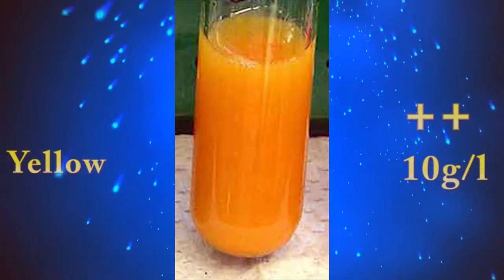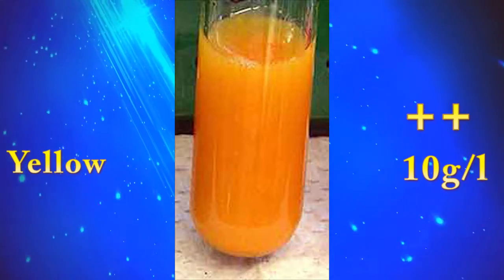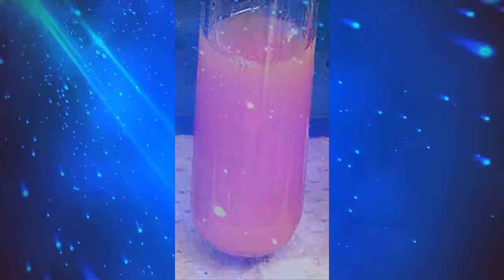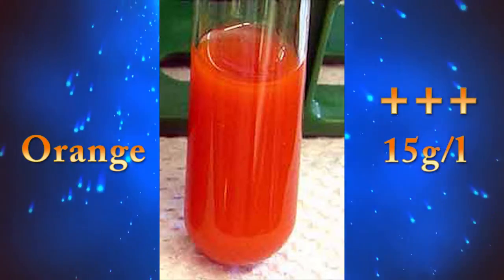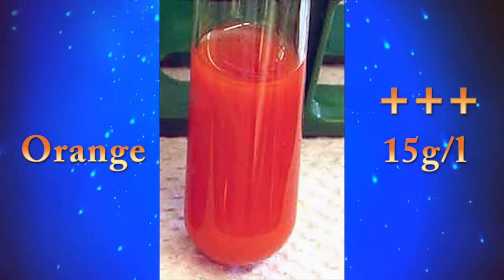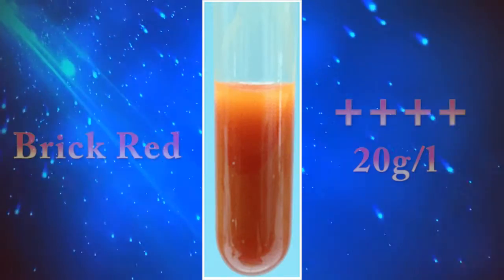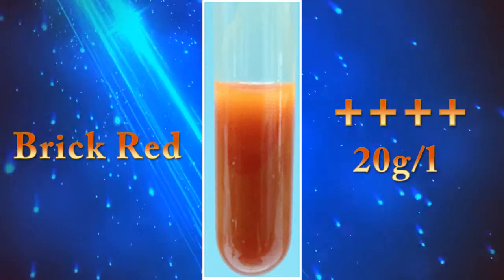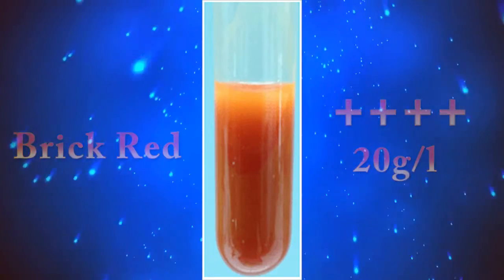If the urine sample color changes to yellow, we can give a 2-plus sign. If the urine sample color changes to orange, we can give a 3-plus sign. And if the urine sample color changes to brick red, we can give a 4-plus sign.